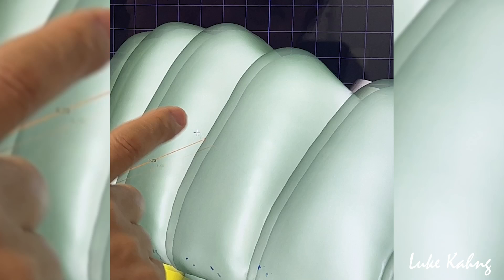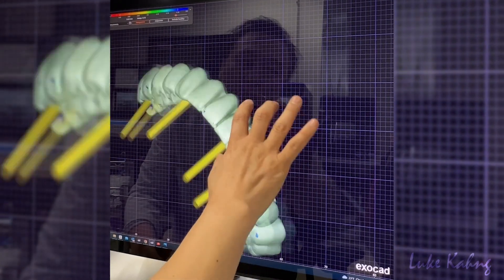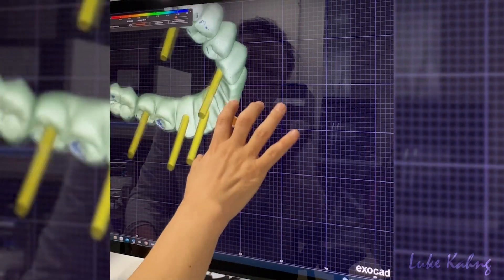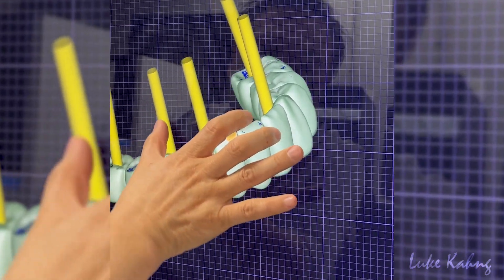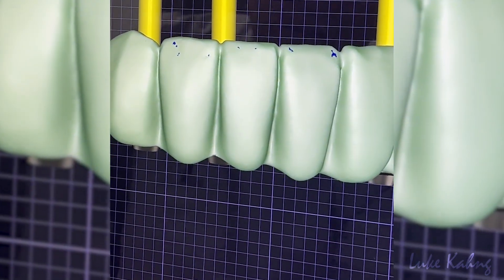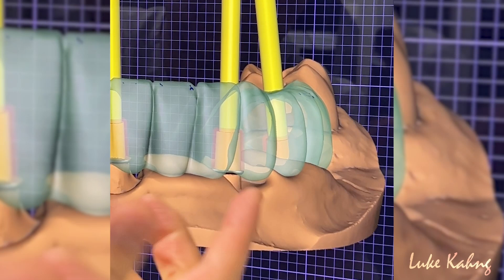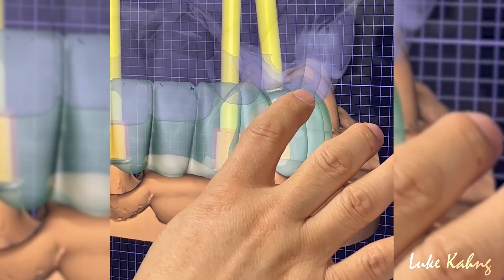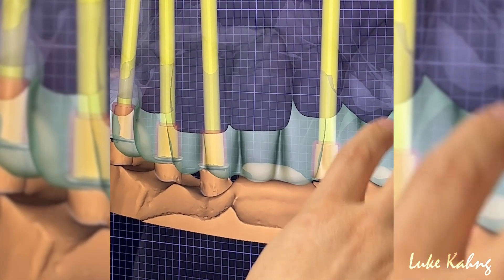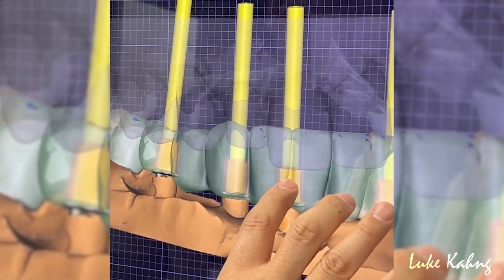You can finish the lower — full mouth, screw-retained implant. I trim this. After I got the final mill, I have to trim a little bit more detail in between. We're going to trim the upper, which is natural teeth, so I'm trying to reduce just a little bit.